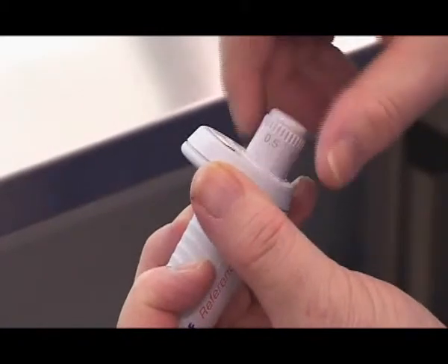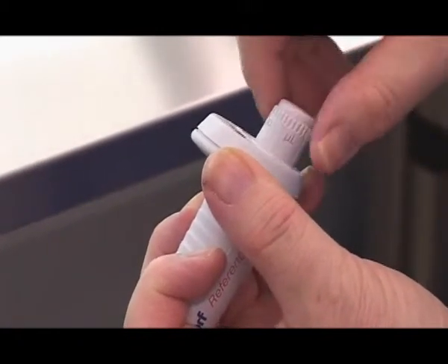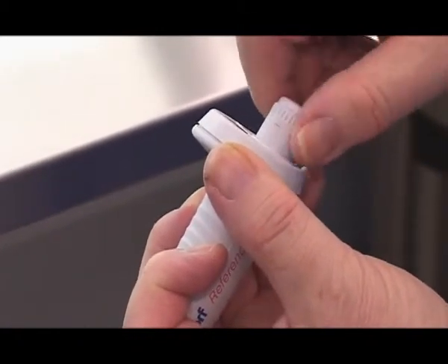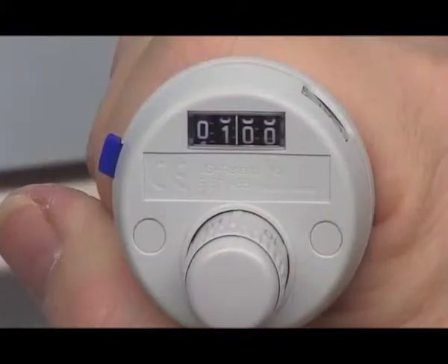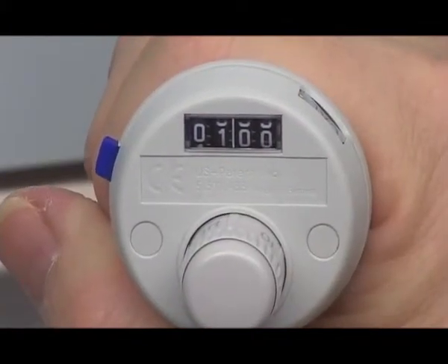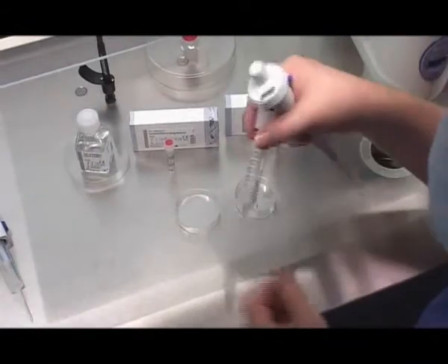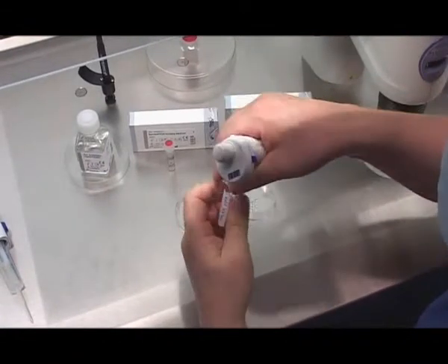Adjust the volume of the pipette from 1 to 5 microlitres. The selected volume is dependent upon the concentration and quality of the sperm suspension. In this case, 1 microlitre is chosen.